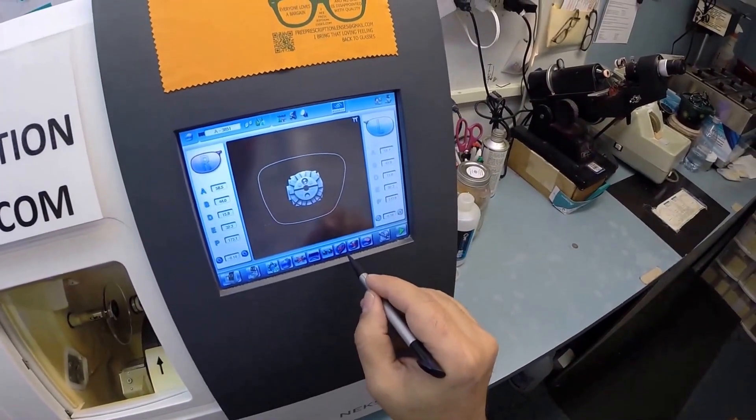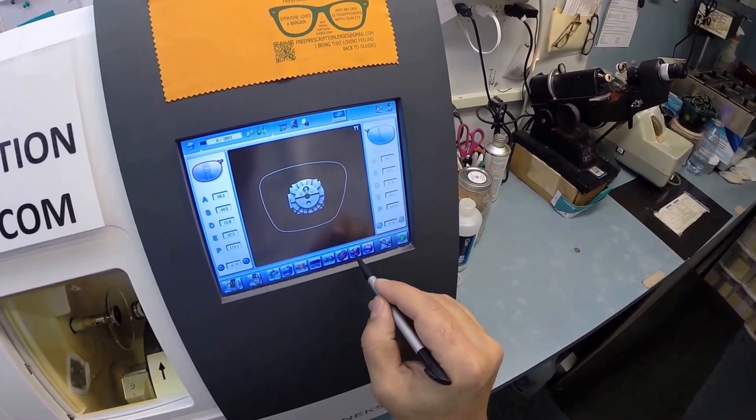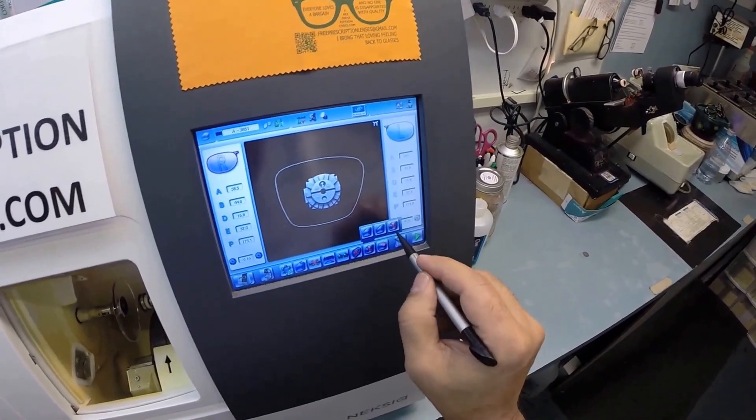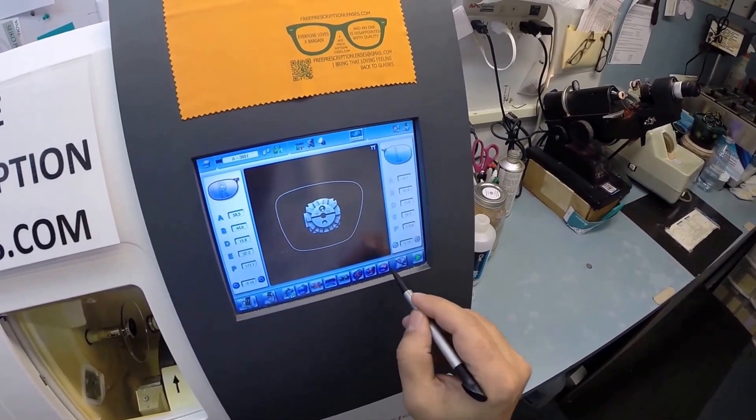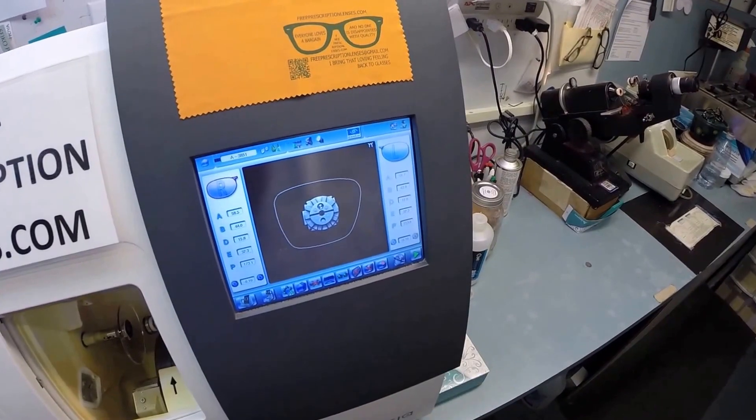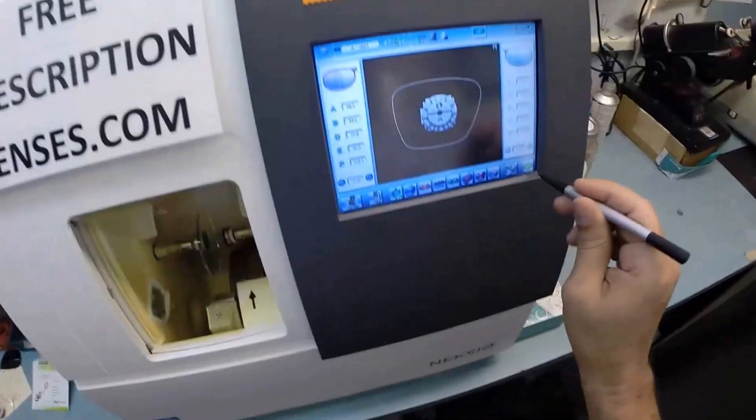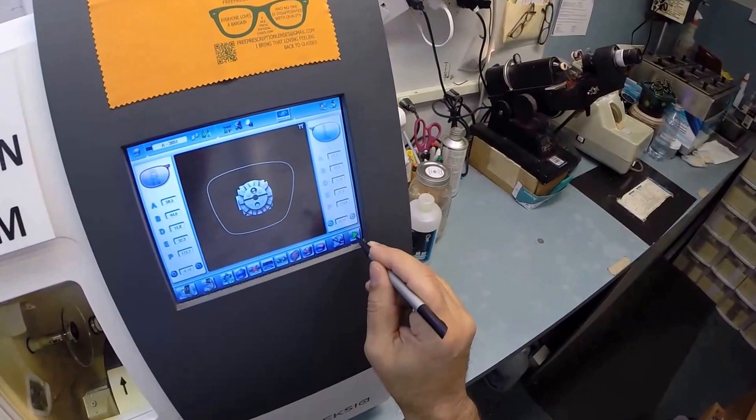I don't want to polish your lenses because it won't be seen in a plastic frame. I do not want to put a bevel on the front convex surface of the lens. I only want to place a bevel on the rear concave surface. That concludes your vocabulary lesson of the day.